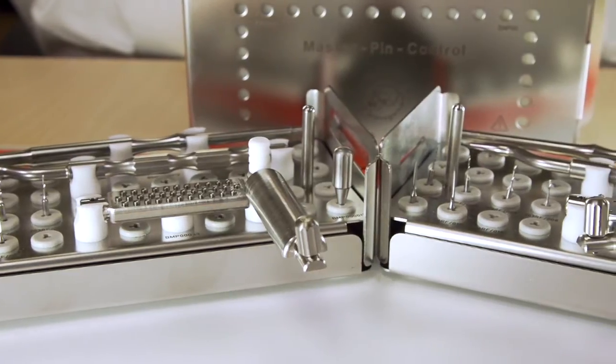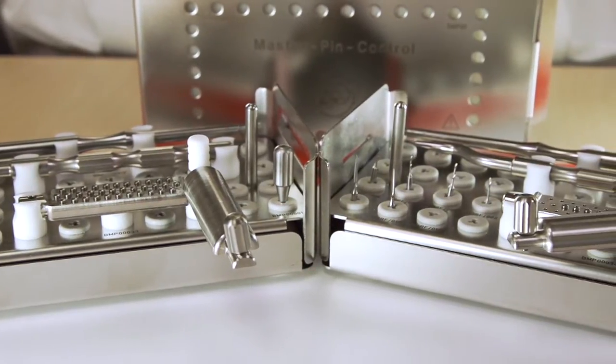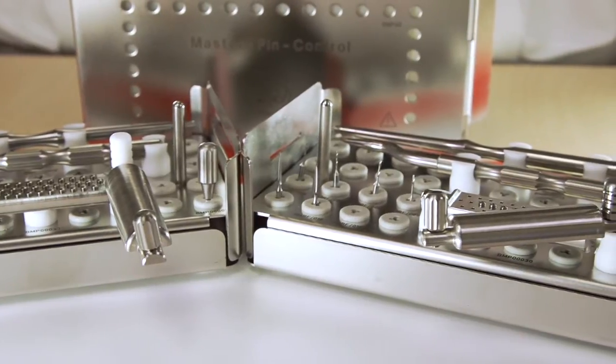Meisinger and Dr. Urban wanted a pin that would be extremely strong and not able to easily bend or break upon placement.